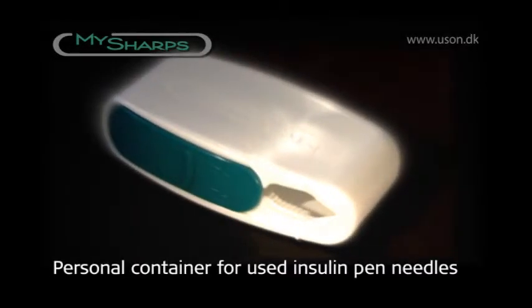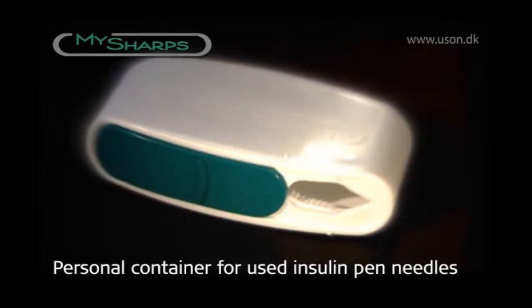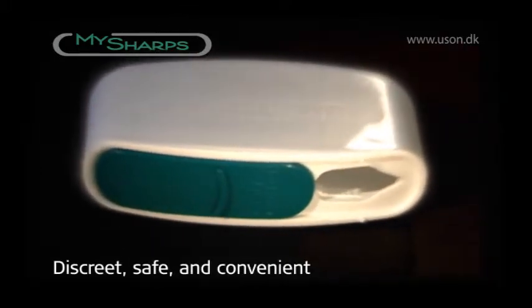MySharps is a new pocket container designed for used insulin pen needles. MySharps is a discreet and safe storage solution for used needles.